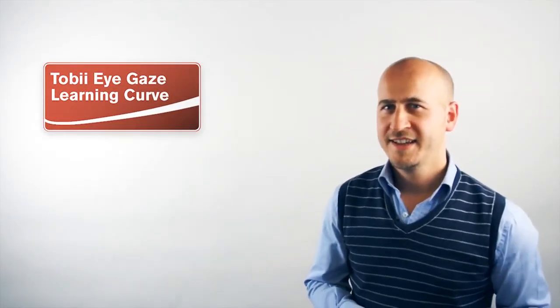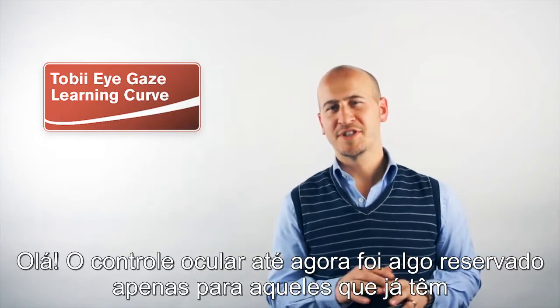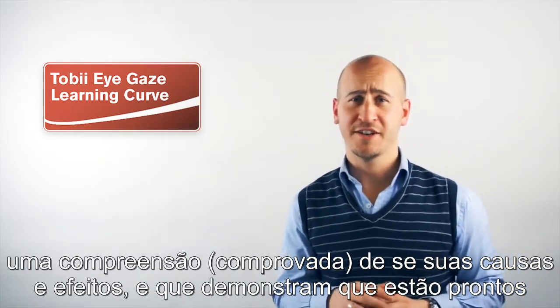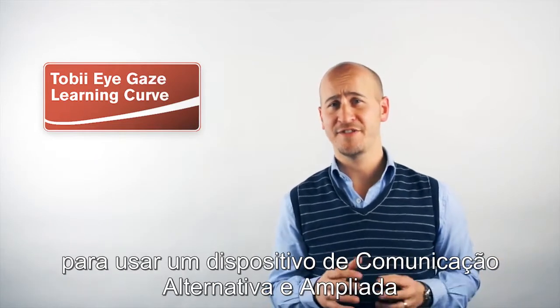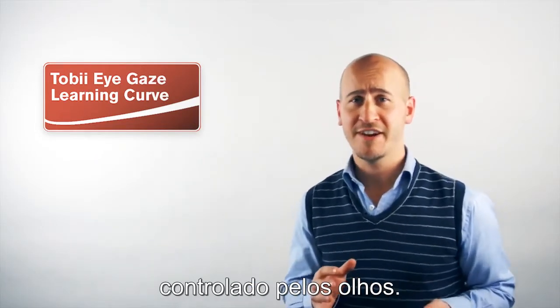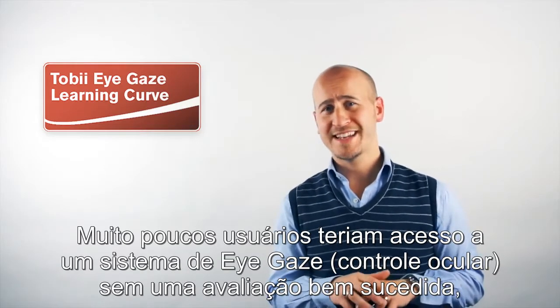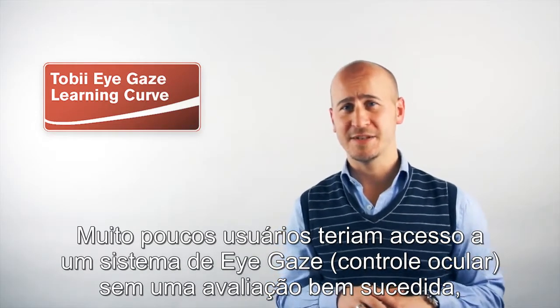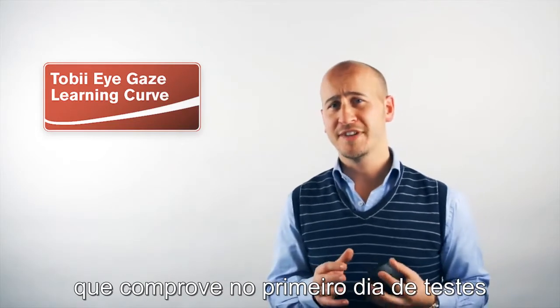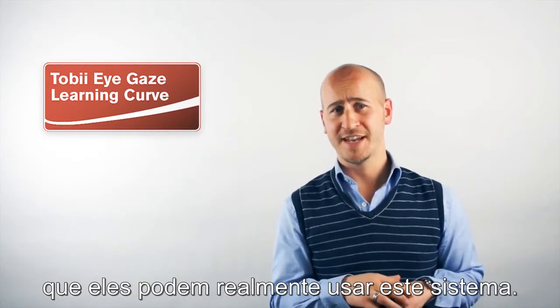Until now, eye control has been reserved for those who have a proven understanding of cause and effect and who are demonstrating that they are ready for an AAC device or a computer to be used by their eyes. Very few users would gain access to an eye gaze system without a successful assessment, without proving they can use it on that day when they're trying it out for the first time.